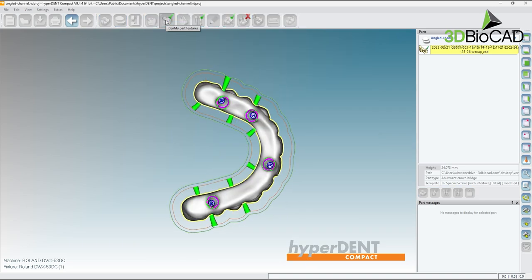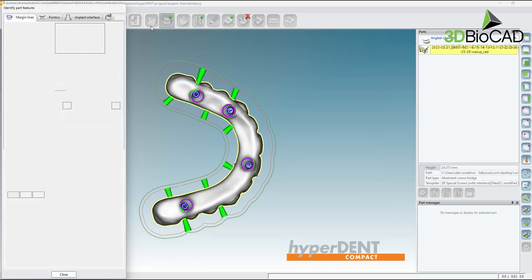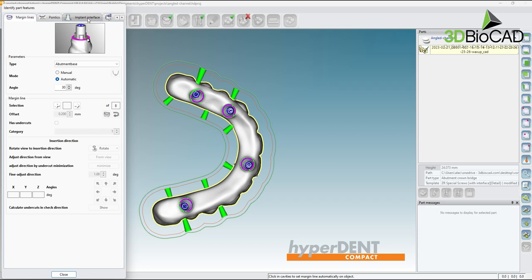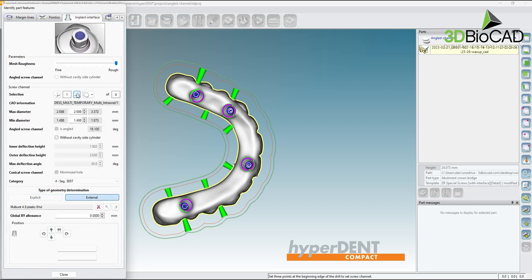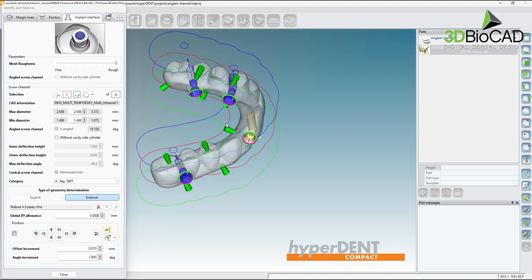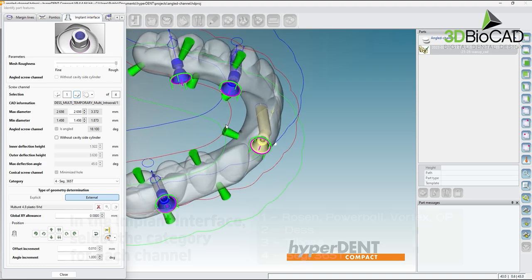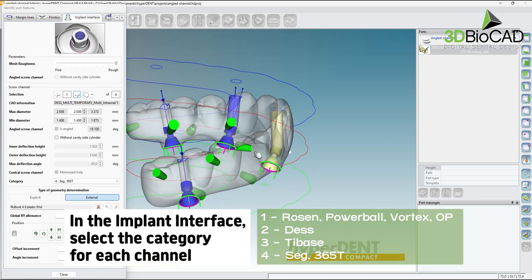Next we should select the implant interface. Let's choose the identify part features button and select the implant interface tab. Select the arrows to cycle through each interface.